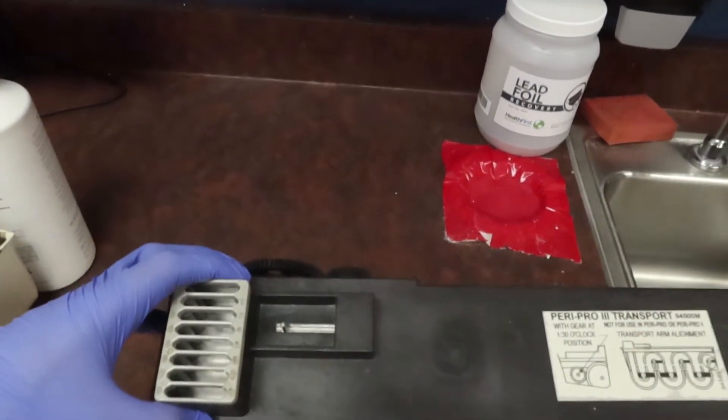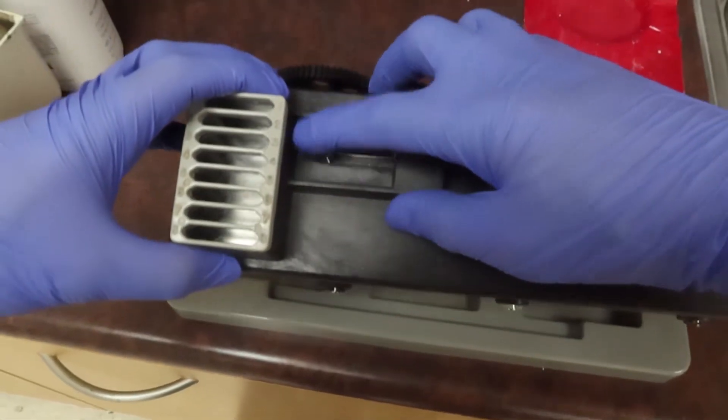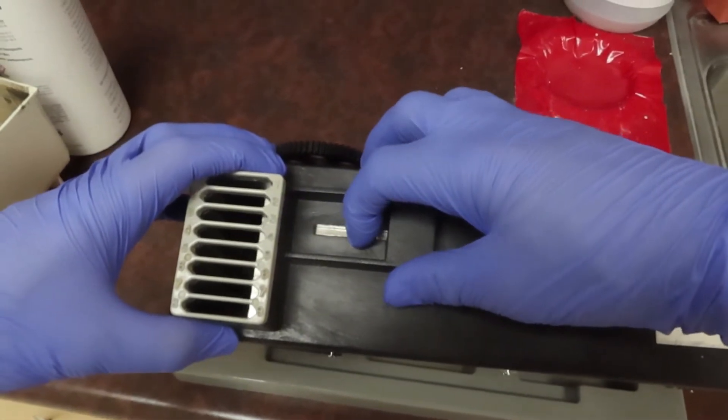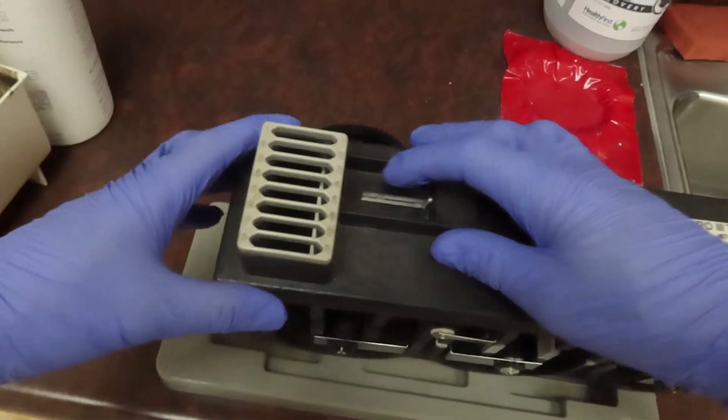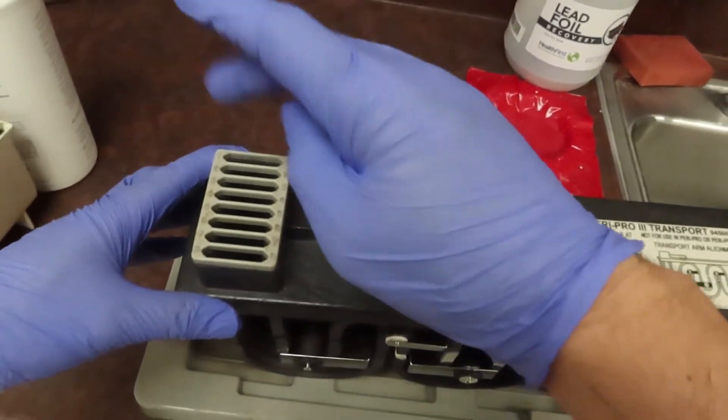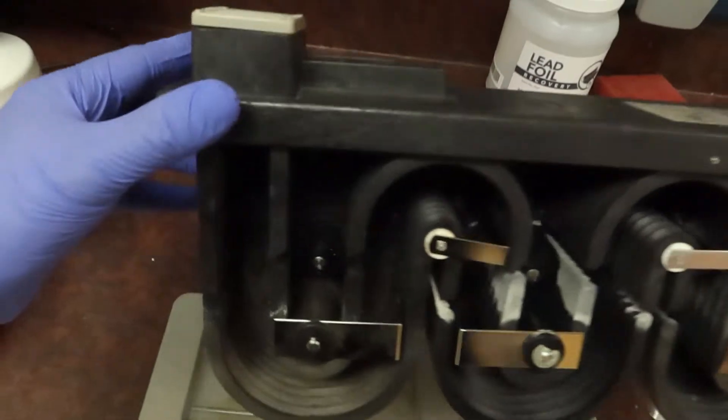After they're in these eight slots, we're going to pull down on this pin right here, and that's going to lock it and open up this door to drop the films all the way down. After this drops them down, it'll lock so you can insert new films.